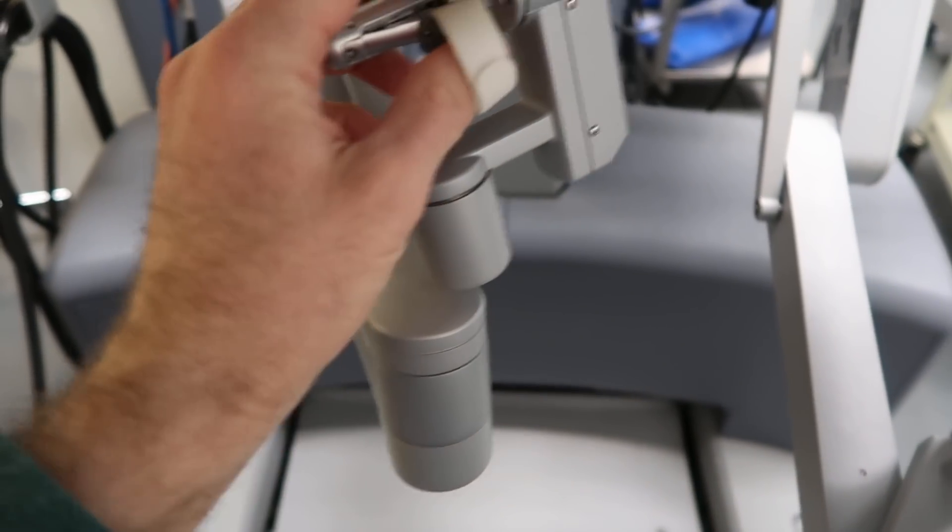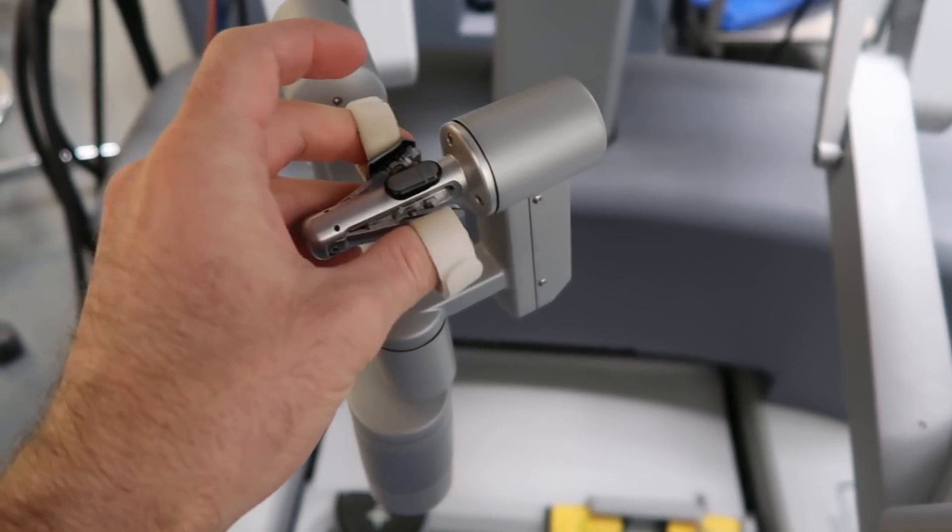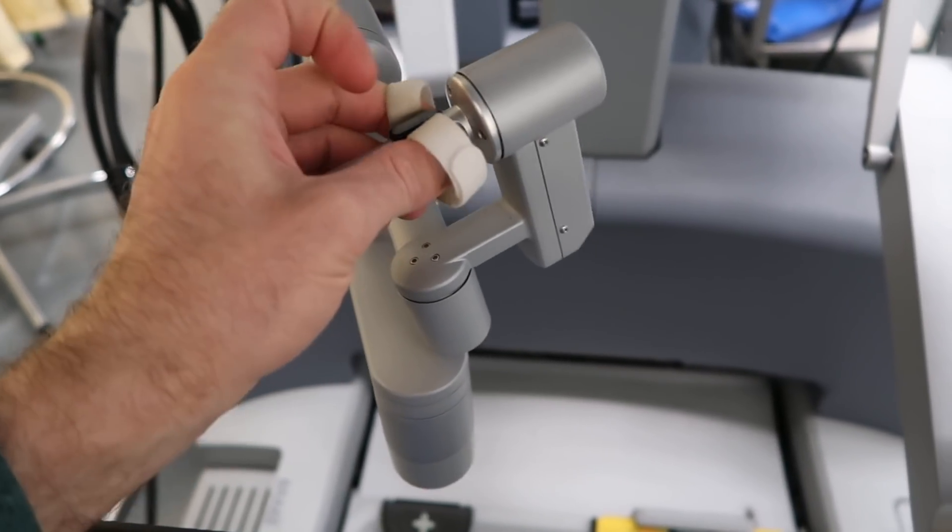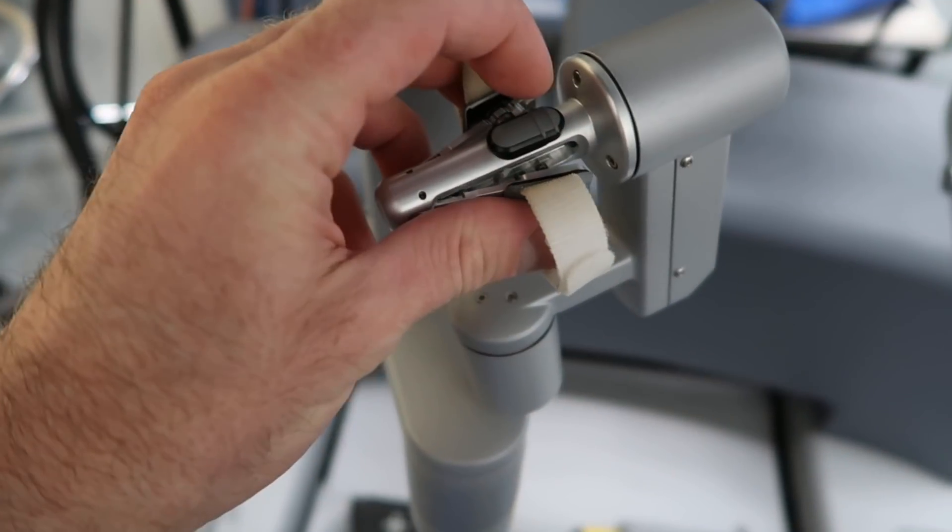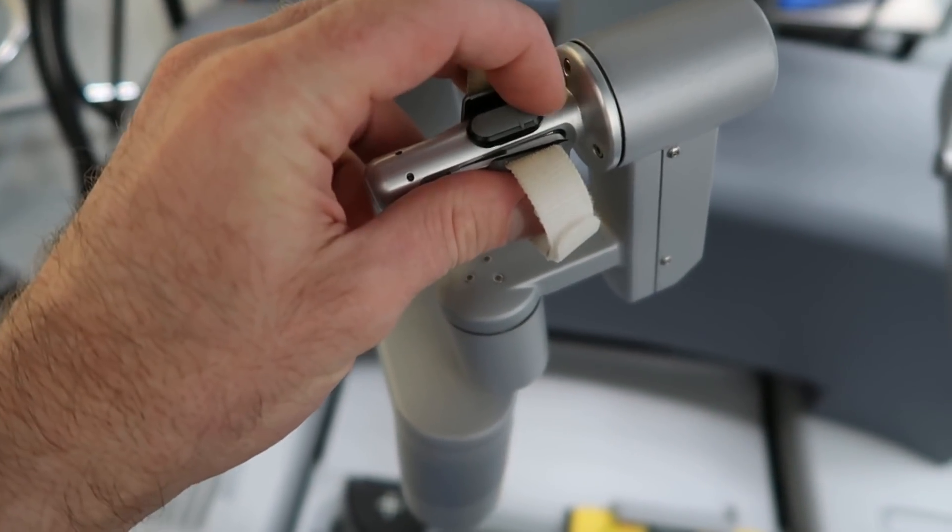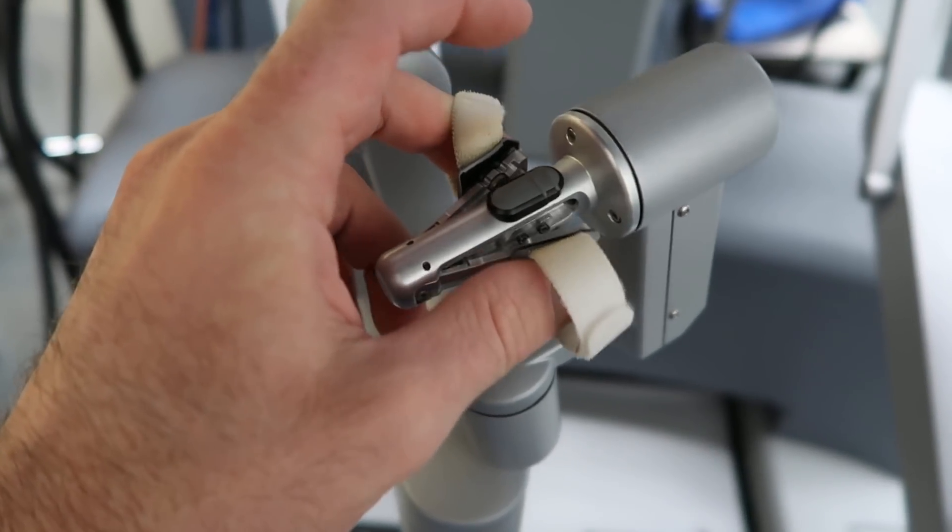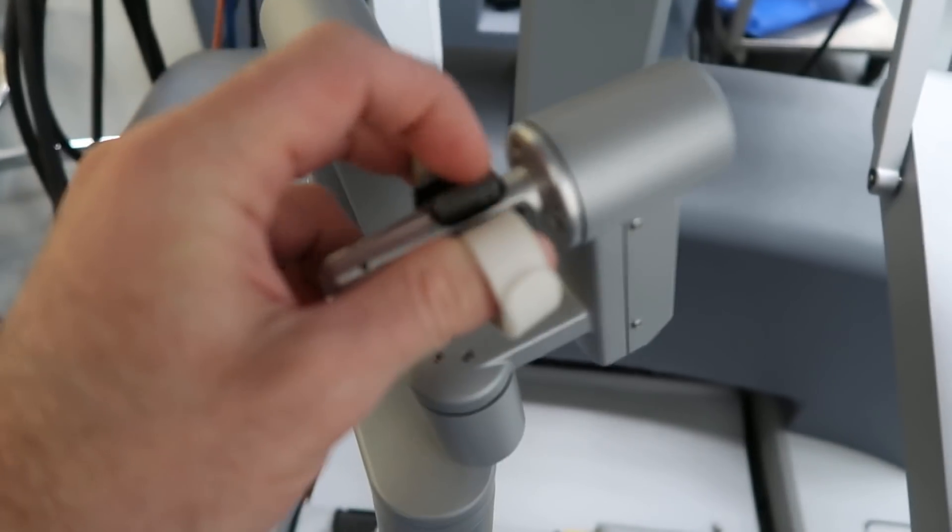When you're doing things on the screen, you're pinching and opening this. If you want to reposition this arm, this thing here by your finger is called the clutch. I'm pushing on this and it's not moving, but as soon as you hit that clutch it pops. I'll show you again - I'm pushing, it's not really moving, but then the clutch lets it unpop.